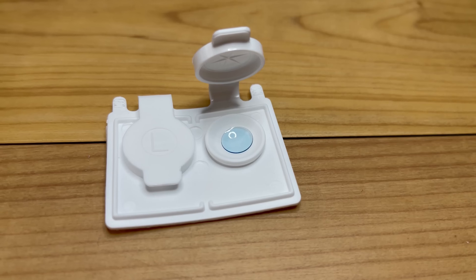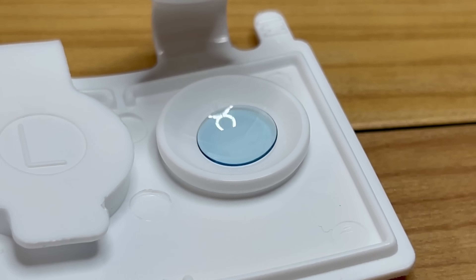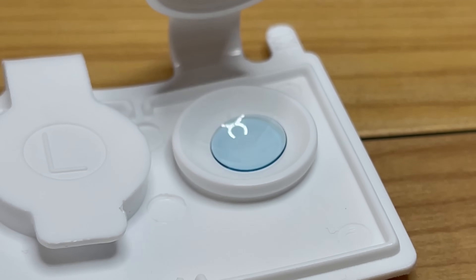What I find so cool about these contacts is that they're basically the backwards contact lens. On this channel I've said it's not good to wear contacts to bed at nighttime, but these contacts are custom-made and specifically designed to be worn while you sleep. You wear the contact lens at nighttime, it shapes and molds the surface of your eye, and then the next morning you take out the contact lens and see clearly throughout the day.